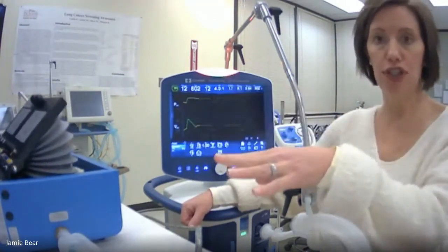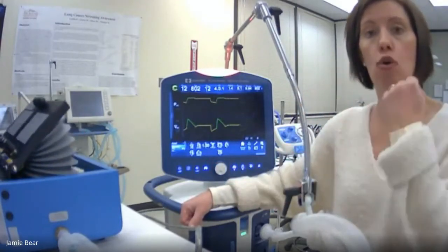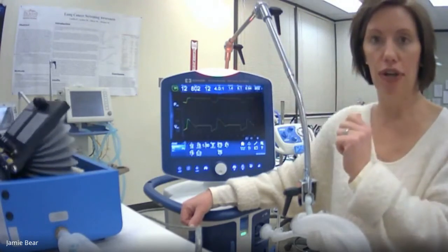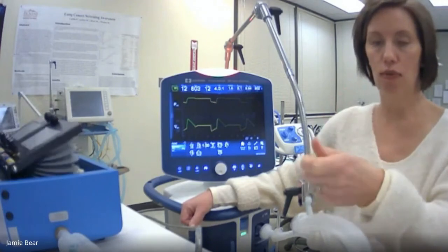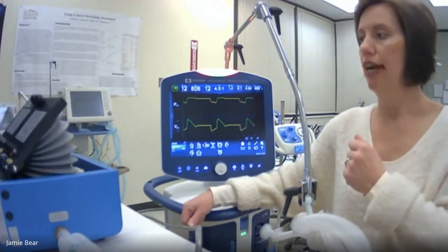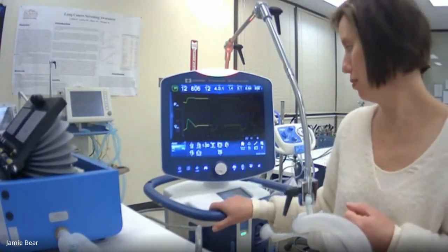Of course, it's controversial. You will most likely see it at some point and utilize it, so please understand how to use it. So once again, look at the patient's plateau pressures on conventional. Go to a 4-to-1 ratio to start. You can do it in SIMV or assist control, whatever your hospital's protocol calls for. And then give it a try. Watch your patients. And then you can add a pressure support if you're in SIMV. If you're in assist control, of course, you can't add a pressure support.